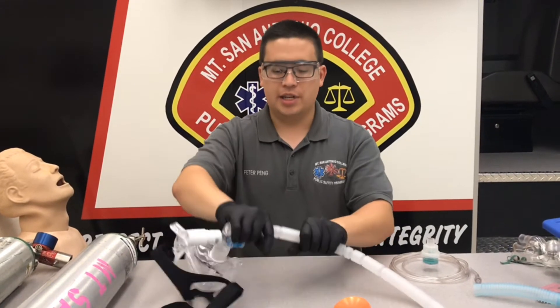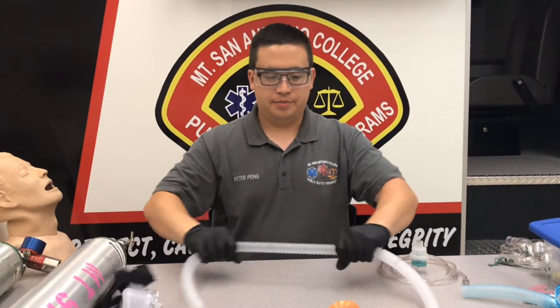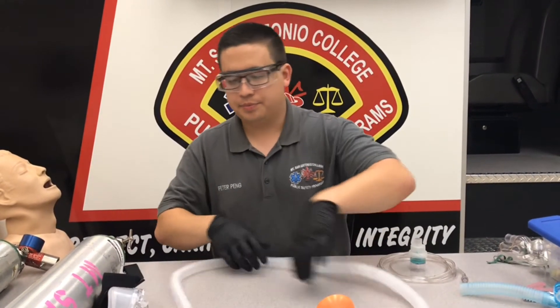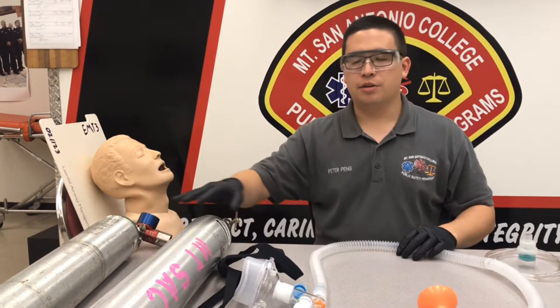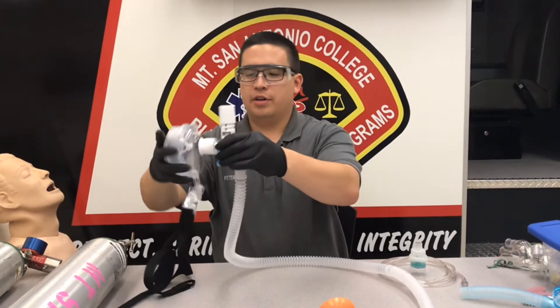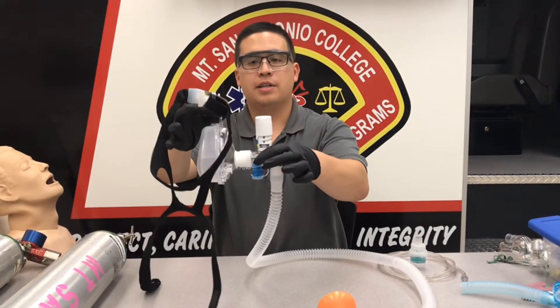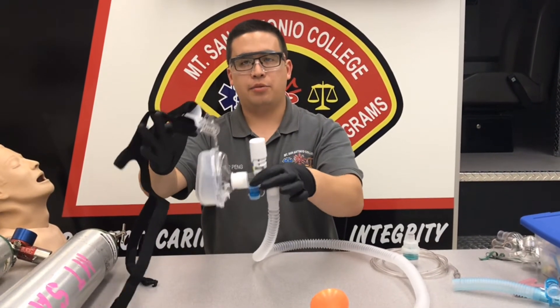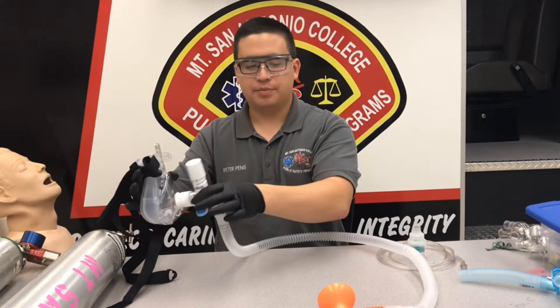First we're going to extend some of the hosing here so we have some room to work. Make sure you have two oxygen tanks — if you don't have two small tanks you can also use the one inside of the ambulance. Make sure you have the correct size mask. These typically come with three sizes, so make sure you have the correct fit for your patient.